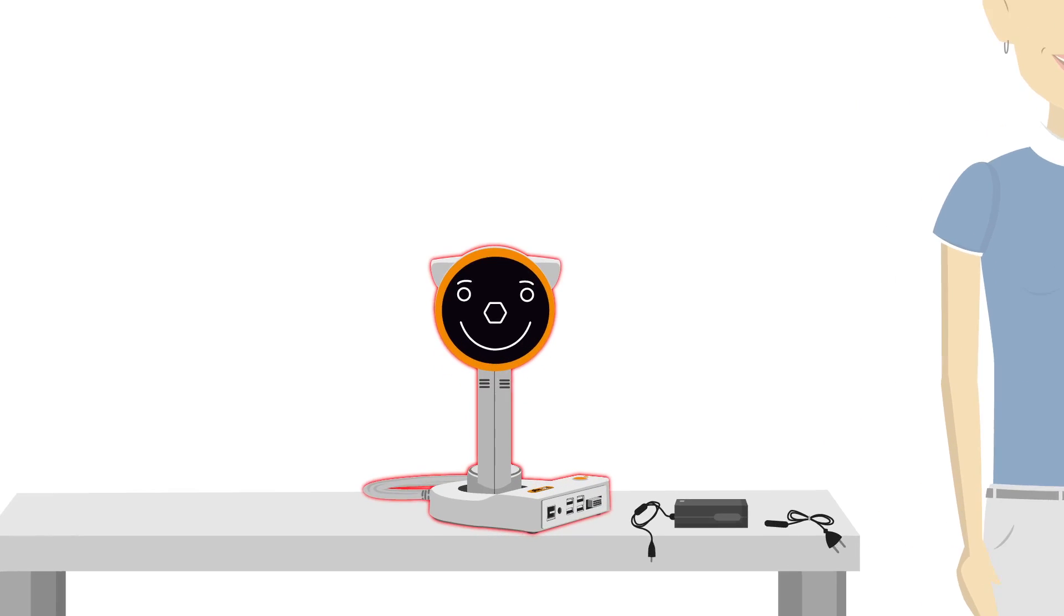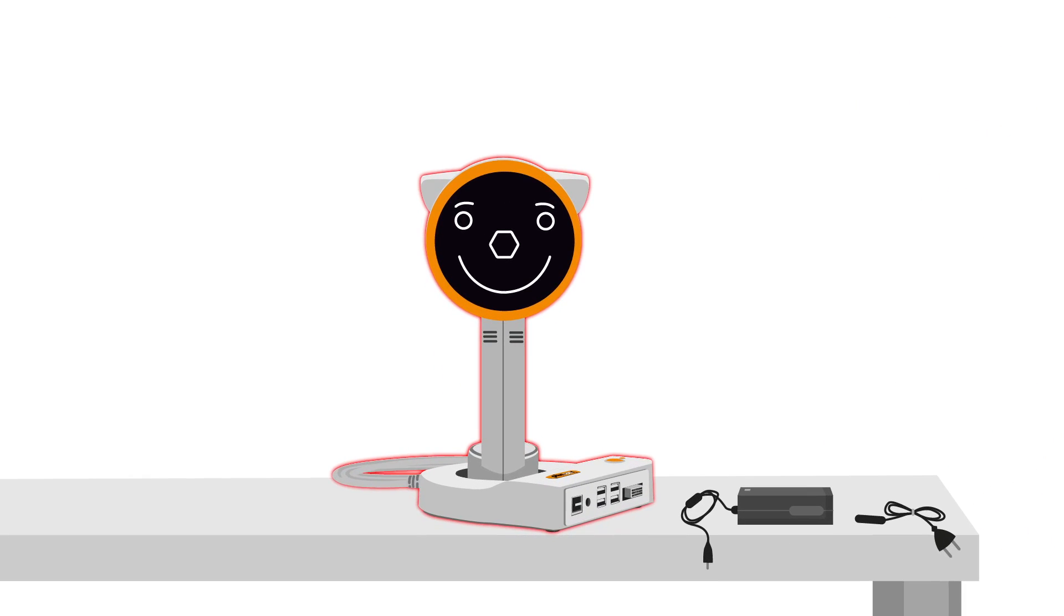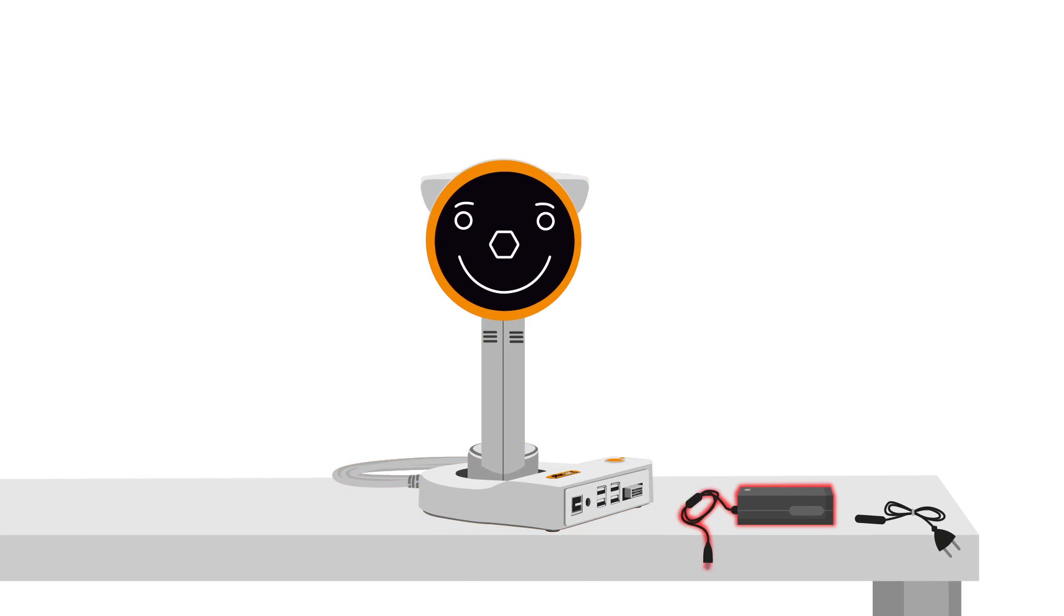There is a PlusOptics S16 Vision Screener with a child-friendly PlusOptics smiley face and cute little ears. There is also a power supply and a power cord. It looks like everything is here.